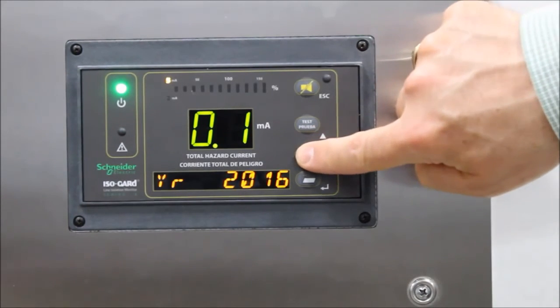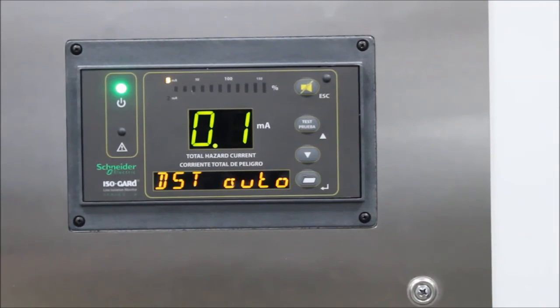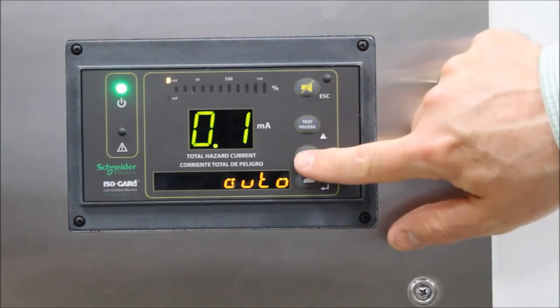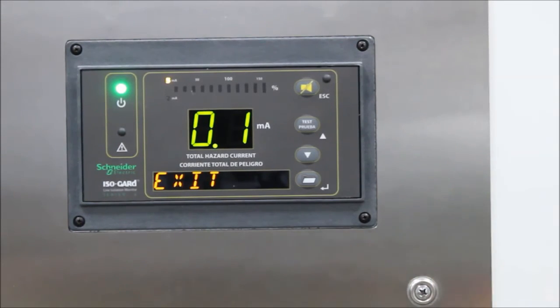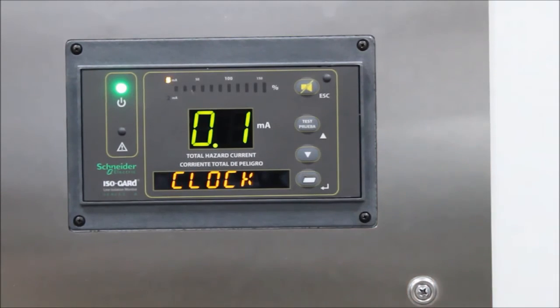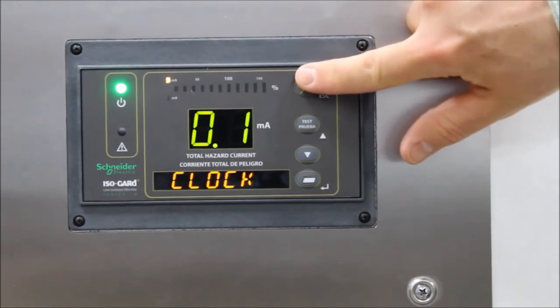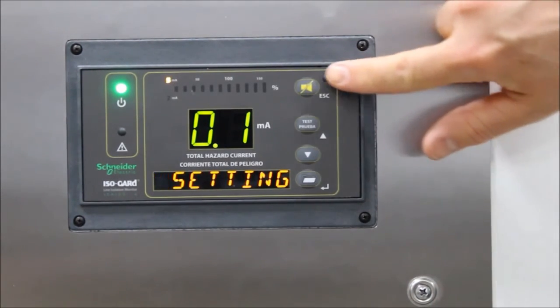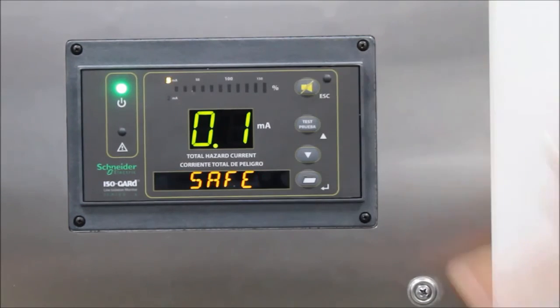We're going to keep that, so let's go ahead and push the down arrow and move through the menu. Let's push it again until we can exit. Go ahead and hit the folder button. This brings us back to the clock. Hit the escape, and hit the escape again.